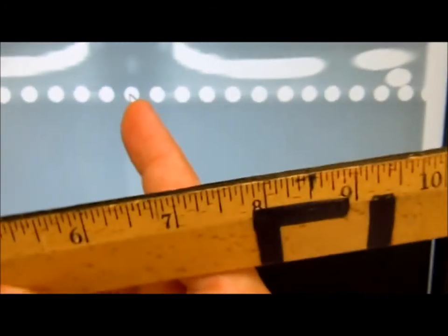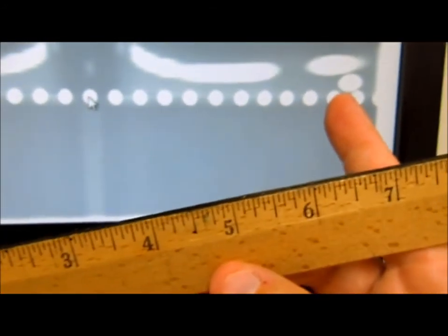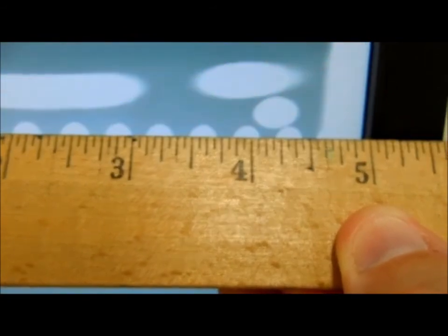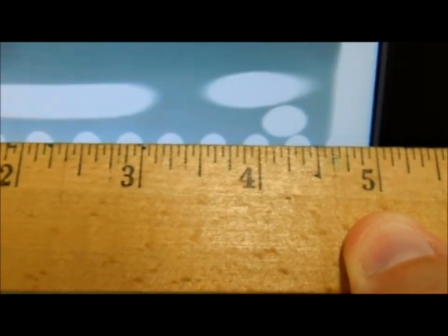Now we will measure the next 10 from here to here. That's approximately 4 inches, which converts to about 101.6 millimeters. We take the difference of that, which is approximately 12.7 millimeters, which lets us know that our ball phantom is out of calibration.